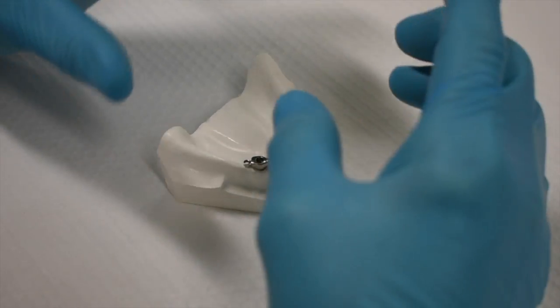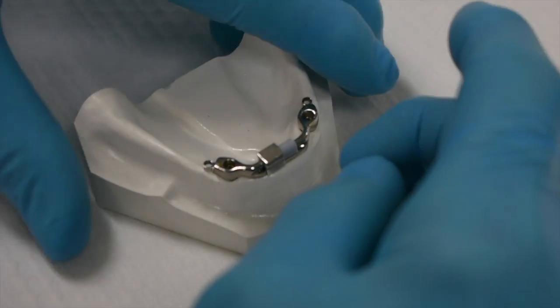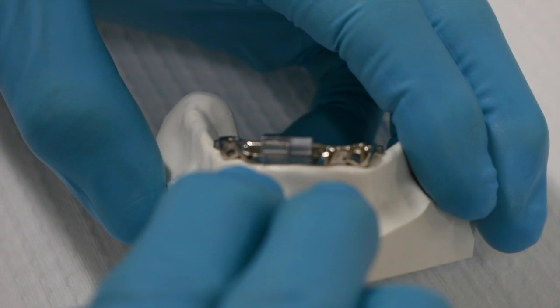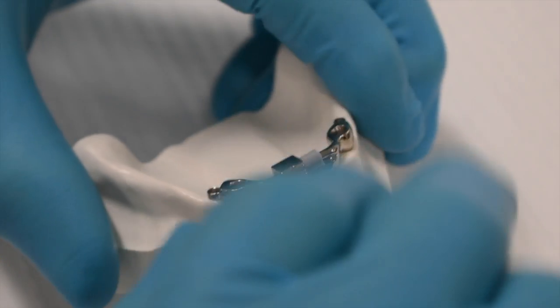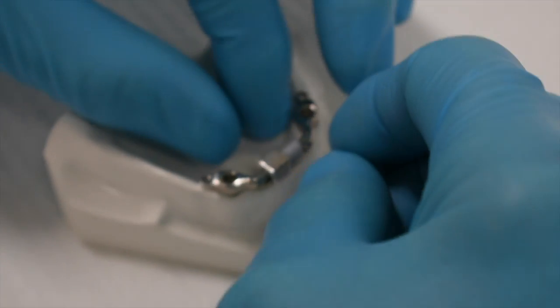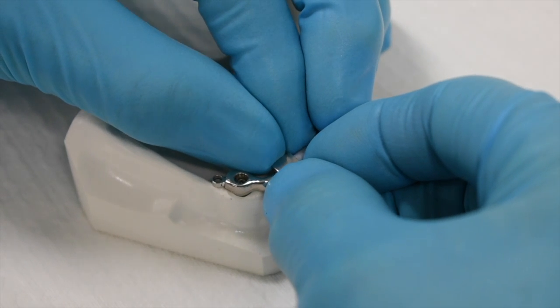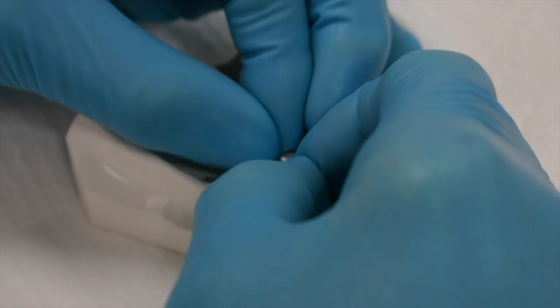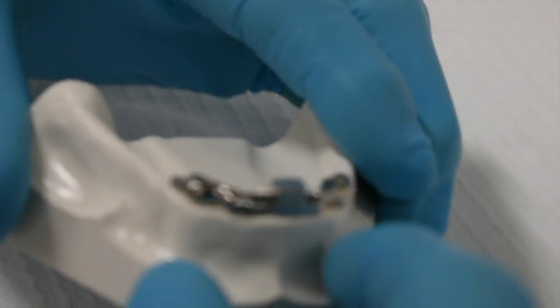The first time I tried this, I had to push really, really hard, and what I found is that I had the metal housing here onto the gray plastic, so it was really hard. This should slide on fairly easily, but you need to get thumb and forefingers, and you just have to push it on. You have to use your fingernails. Okay, so I've got that on.